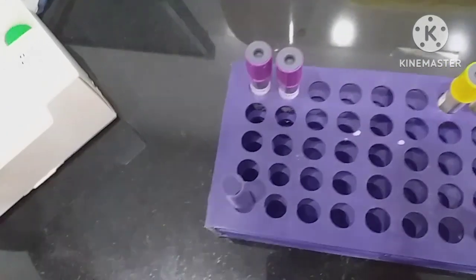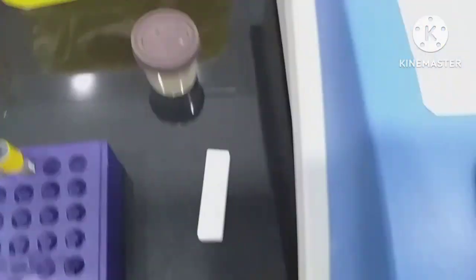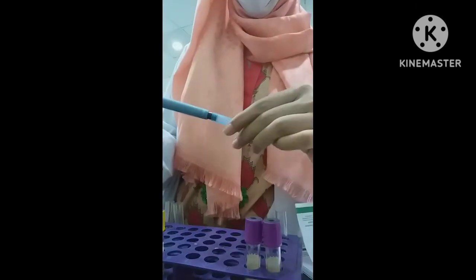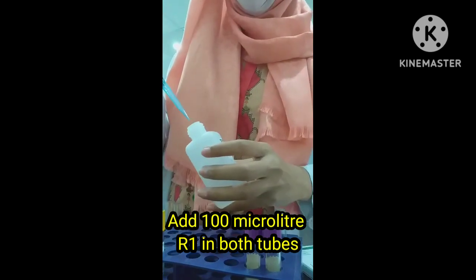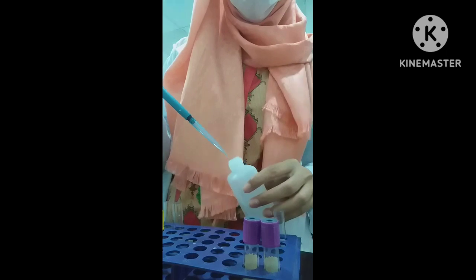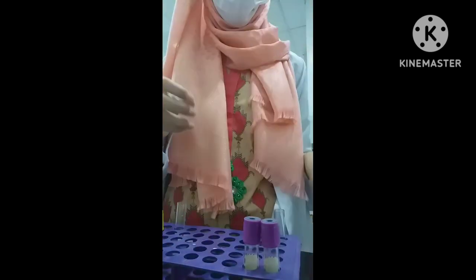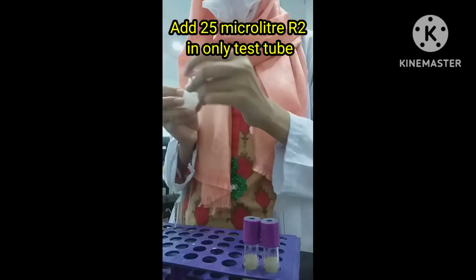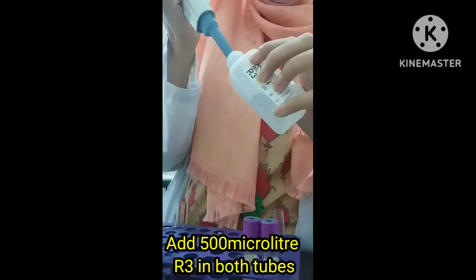Now let's start the procedure. Take two test tubes — one for blank and one for test — along with the four reagents R1, R2, R3, and R4. Take a 100 µL pipette and add 100 µL of R1 in both tubes. Then add 25 µL of R2 only in the second test tube marked as test. Then take R3 and add 500 µL of R3 in both blank and test tubes.